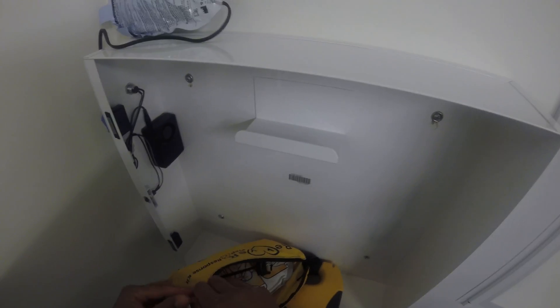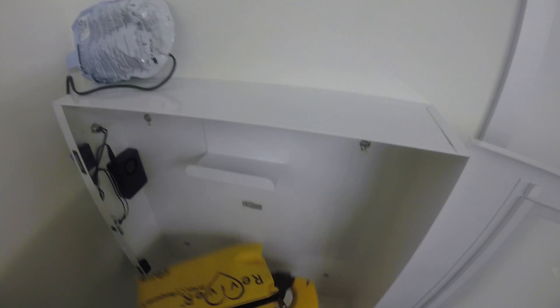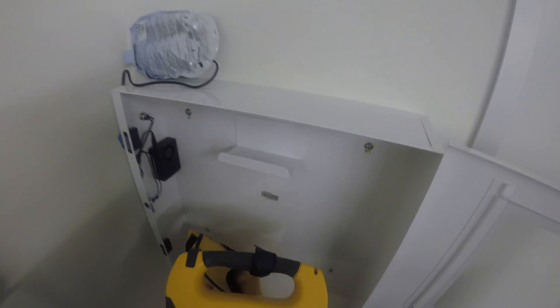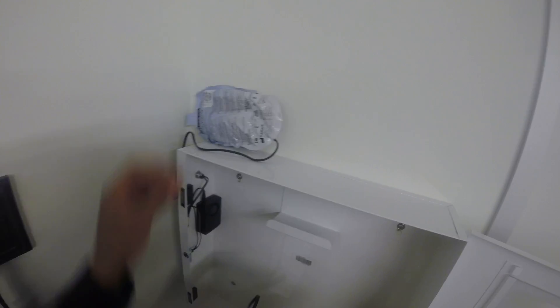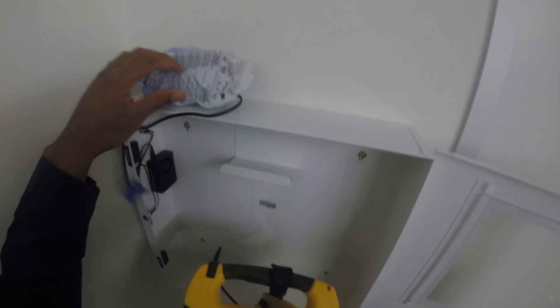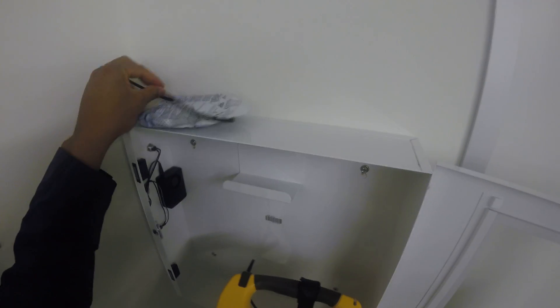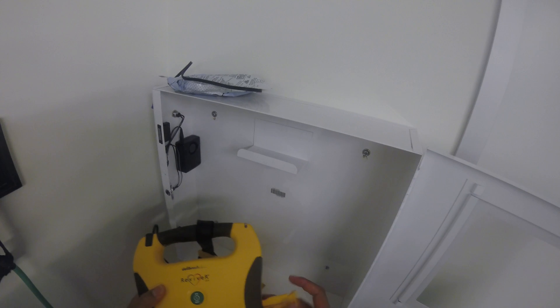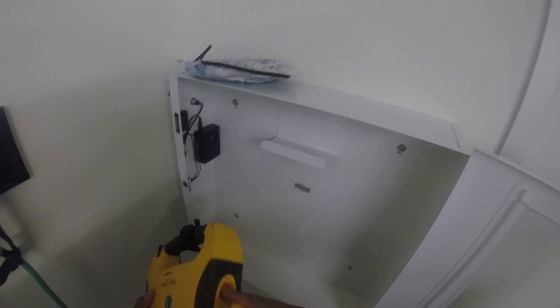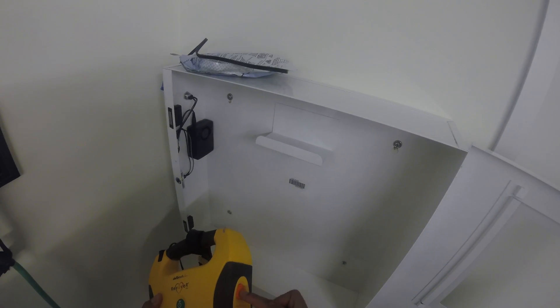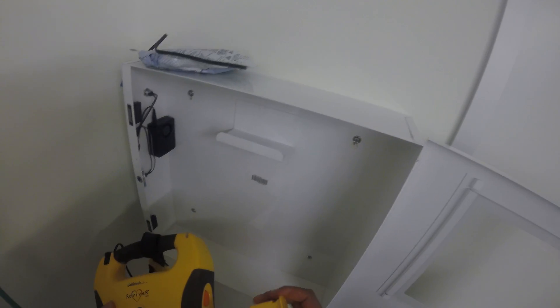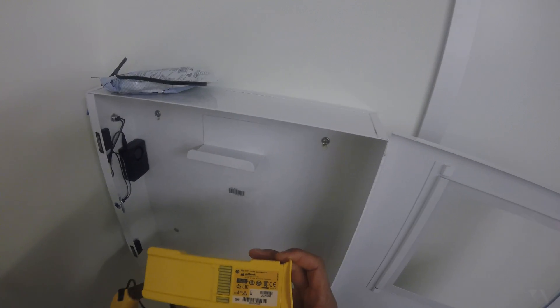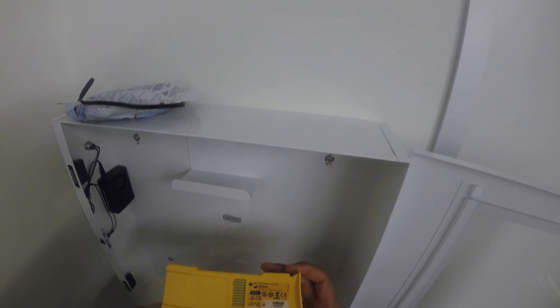So the expiration dates are good for the ones in there. I have to replace the pediatric pad, so I'll get to that. Then I'm going to check the expiration date on the battery. I'll just pop it out by pressing this orange button. See, I'll pop it out.